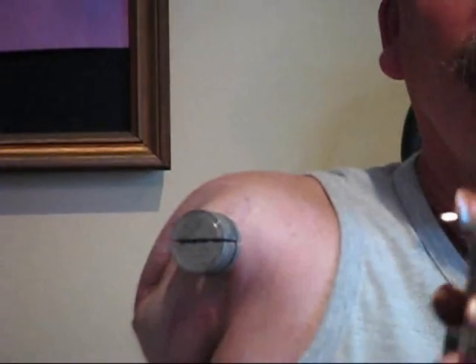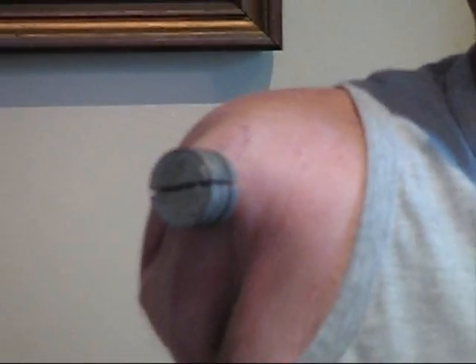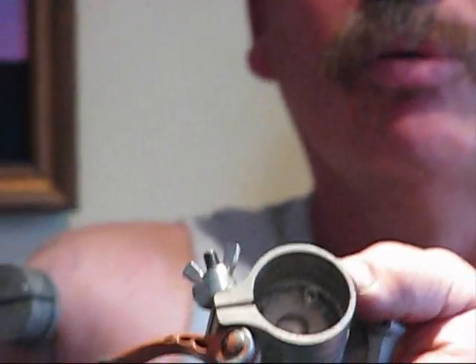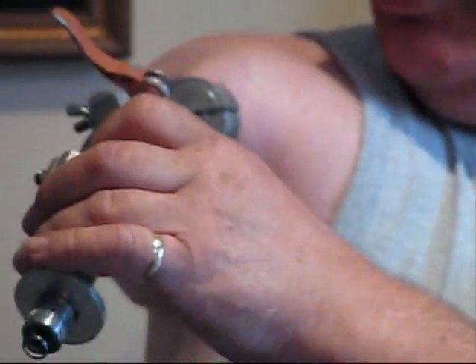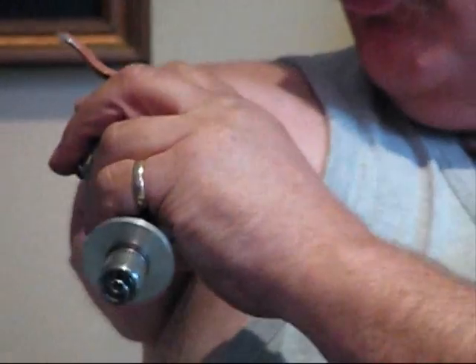This is the puck that goes over my abutment to help hold my prosthesis on — it's like a hockey puck. It's in two halves and it clamps over like that, over my abutment. It goes on like so, and then I have a small sub-arm which has a rotational device on it which protects the bolt from any twisting or torque motion. There's a clamp with a bicycle-type clip on it which goes over the puck, and that's the way it's held on.